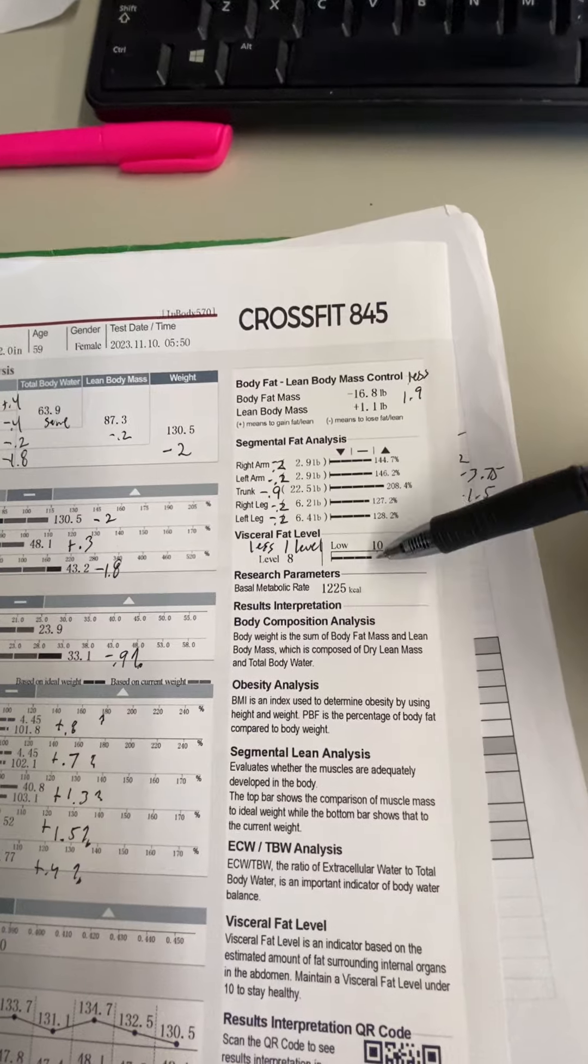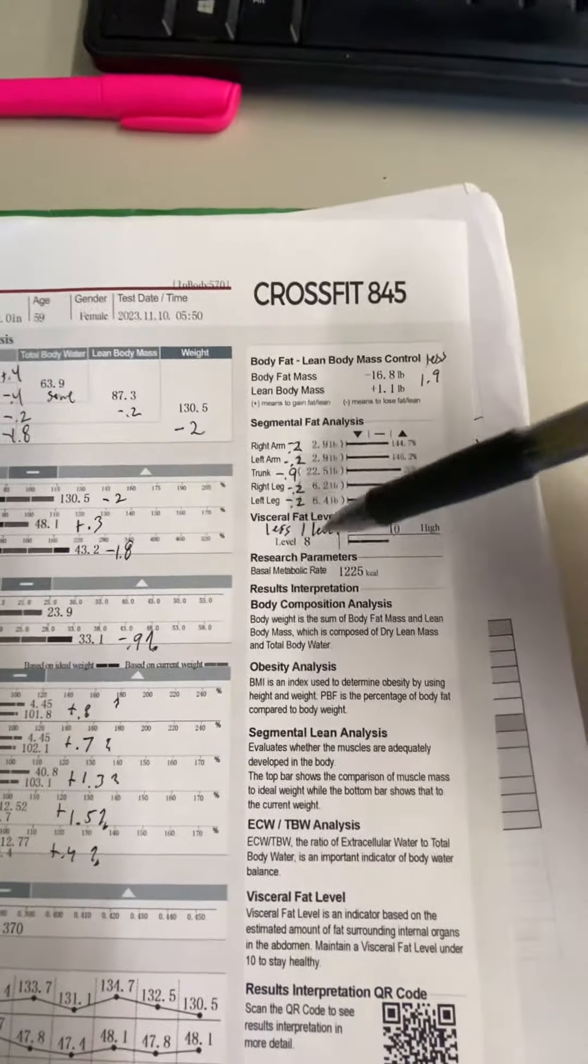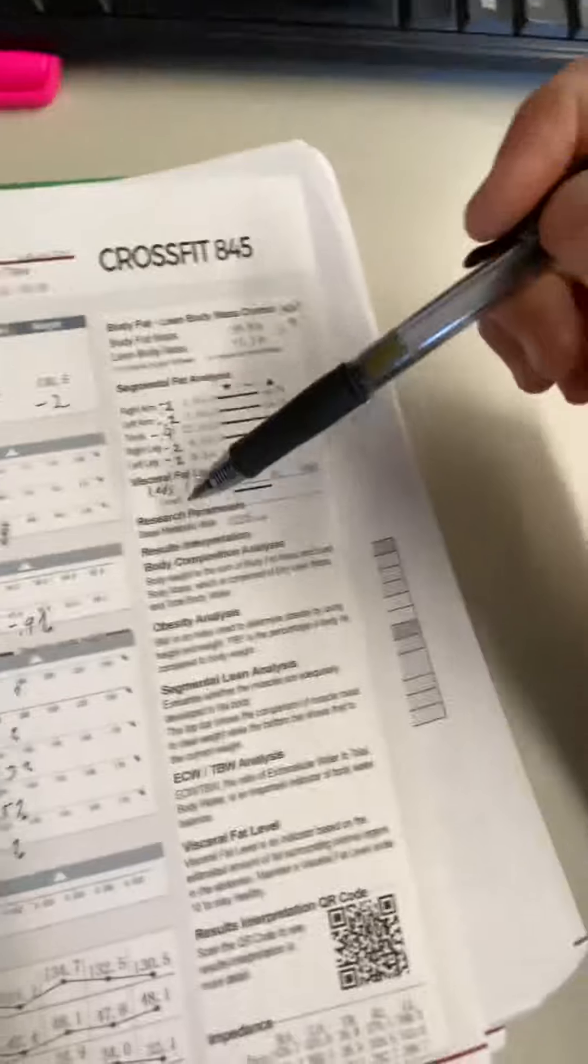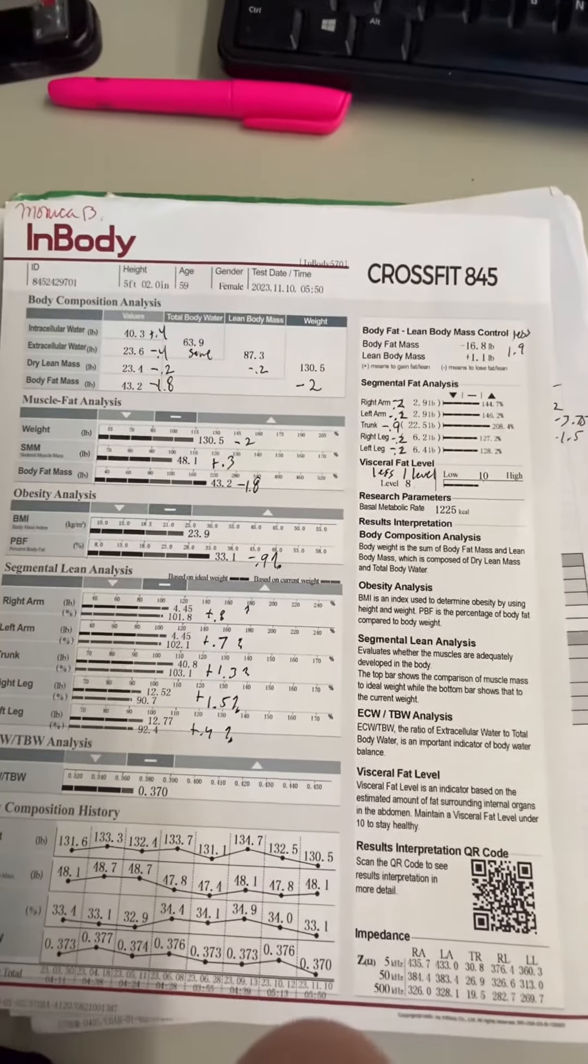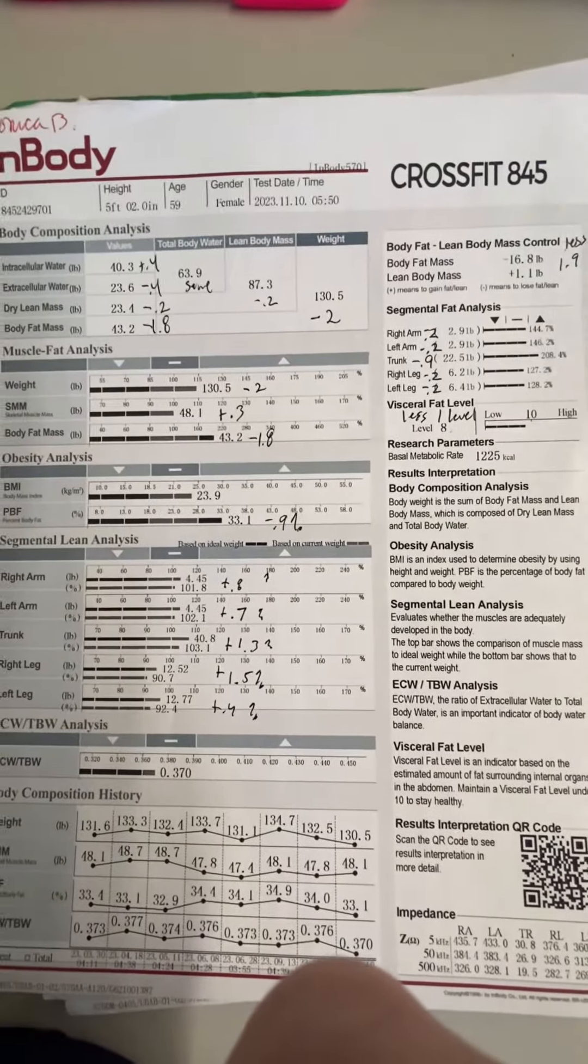Anything 10 or below is considered healthy visceral fat. You had a level eight - it was at a level nine. So really good. I mean, all in all, it's a really super good scan. I'm super proud of you. Let me know if you have questions.